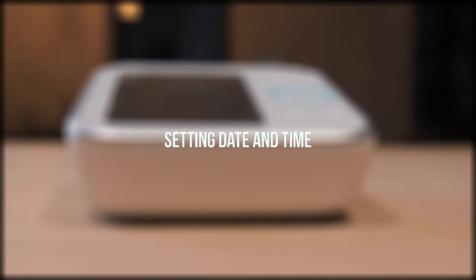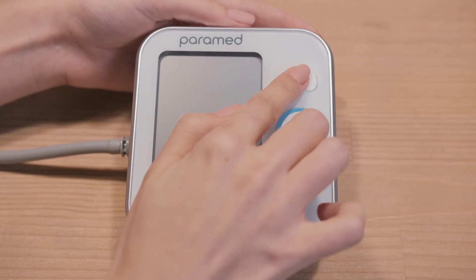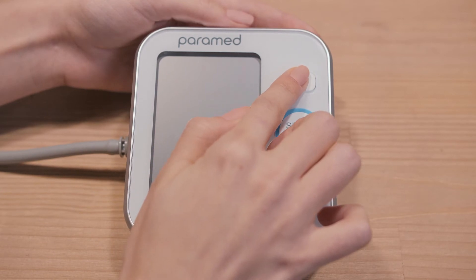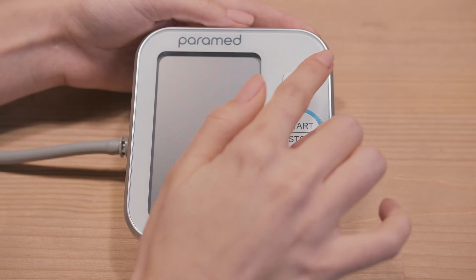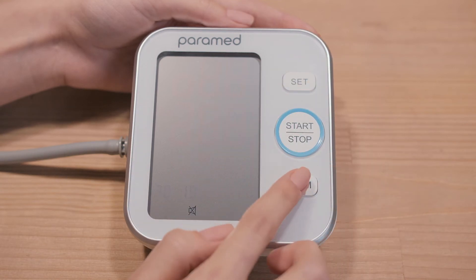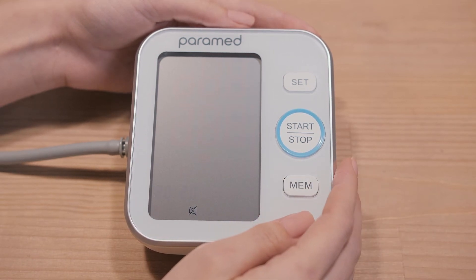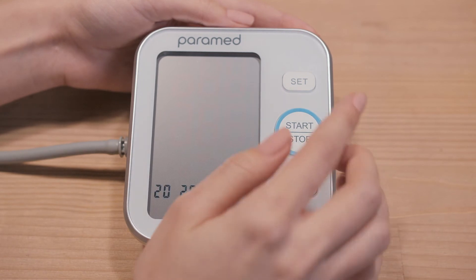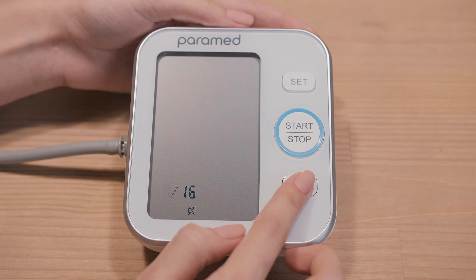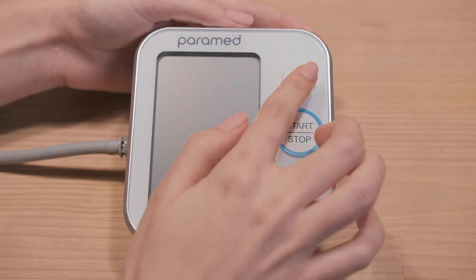3. Setting date and time. While the screen is off, press the SET button for more than 3 seconds. Press SET several times until the date and time symbols appear. To change the year, press the MEM button. After each click on MEM, the date will change by one unit. To change the month and date, press SET again and use MEM to choose the needed value. To save, press SET and then the OFF button.